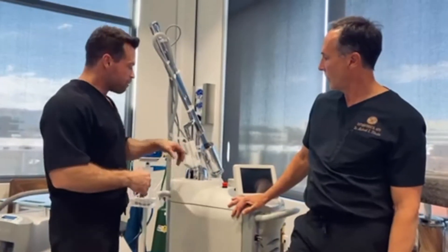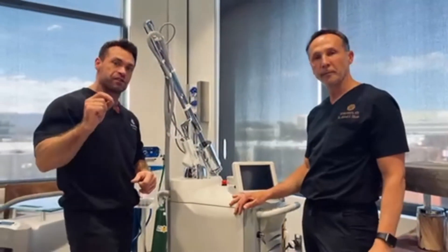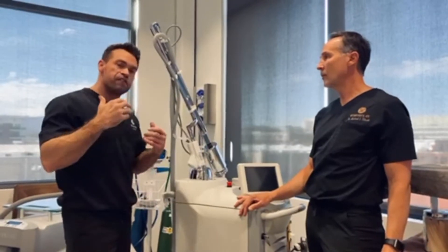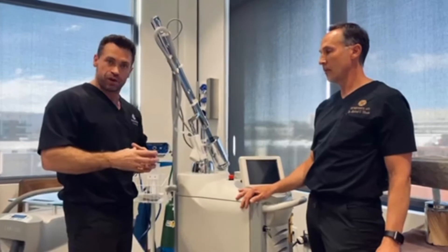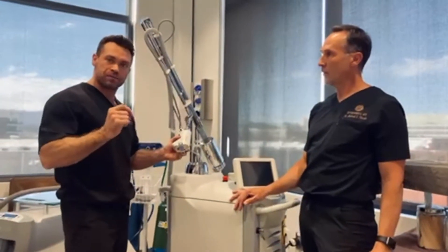So what do we have? We have both wavelengths — the Erbium and the diode — built into this device and fired simultaneously. That was the first time that was ever done. Further research showed that the temperature of the skin affected the depth and power of the treatment, how much heat damage there was. So this was the first laser to incorporate what's called DTO — Dynamic Thermal Optimization Technology.